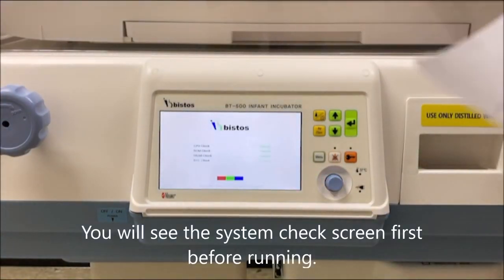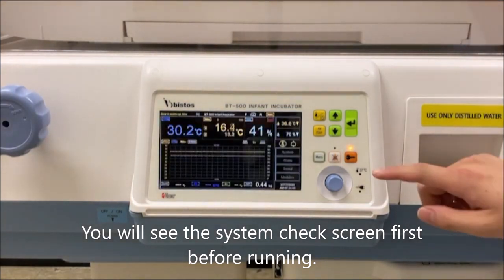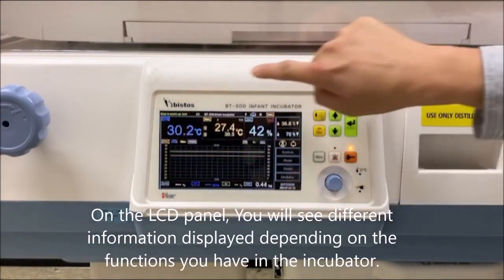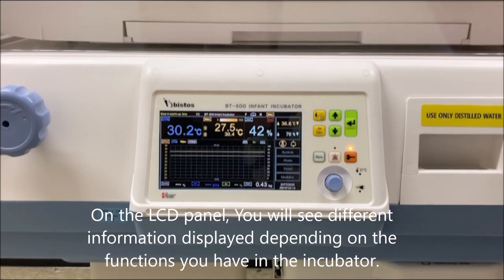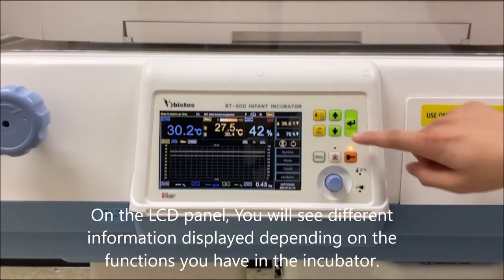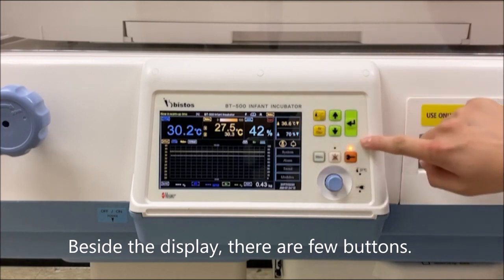You will see the system check screen first before running. On the LCD panel, you will see different information displayed depending on the functions you have in the incubator. Beside the display, there are a few buttons.